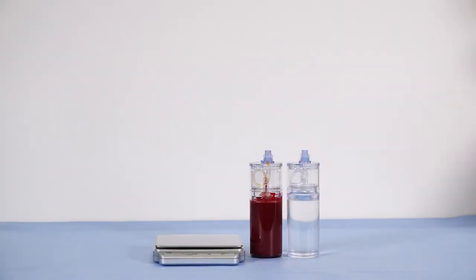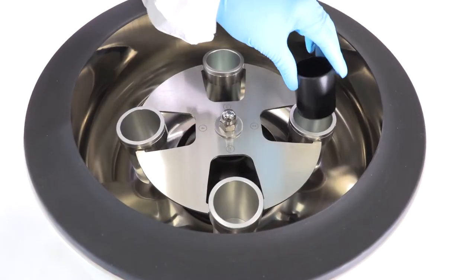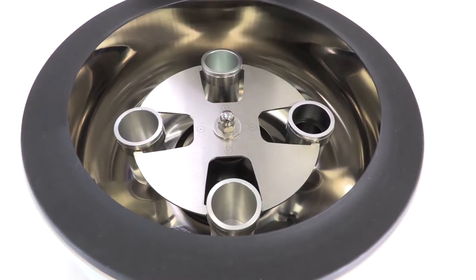Use the counterbalance device to counterbalance with equal volume. Place the thin inserts in the buckets as shown.